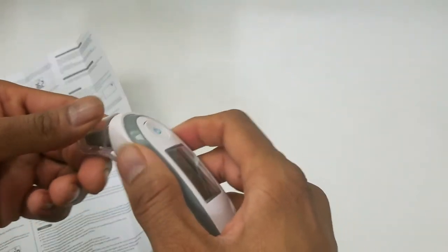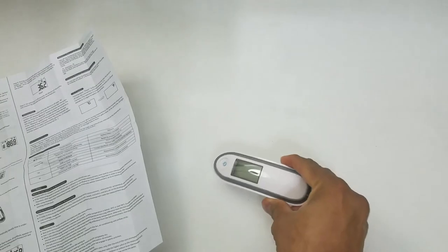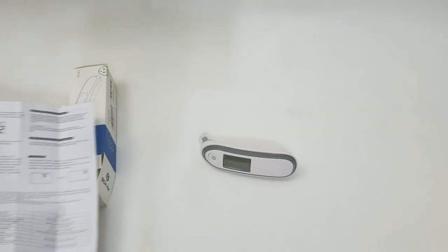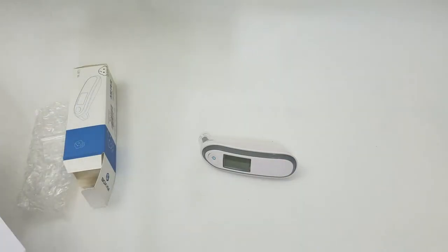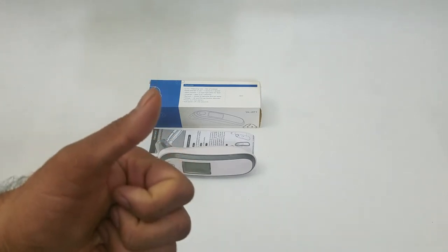This I will say is a must-have accessory for any parent or any adult, as it allows you to read your body temperature instantly. A really great addition to your first aid kit. Definitely a big thumbs up for me.